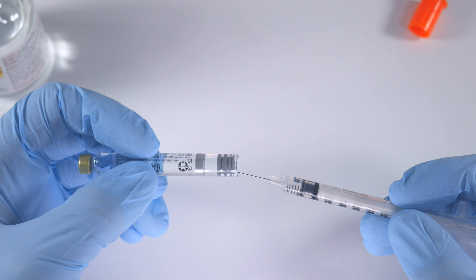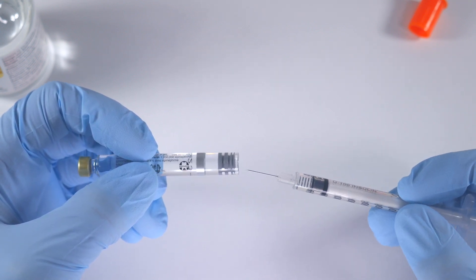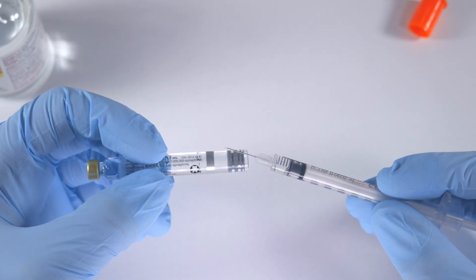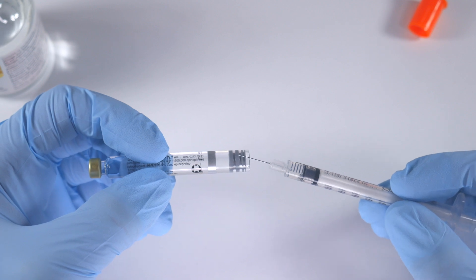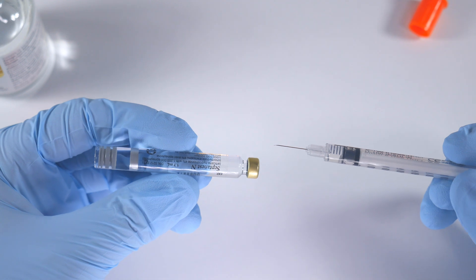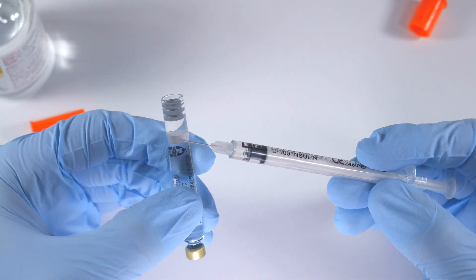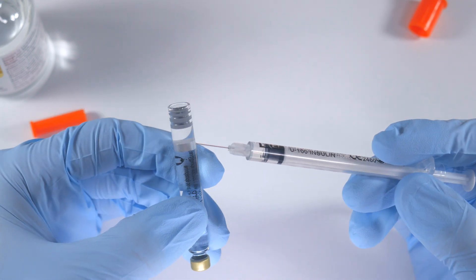Now when you're doing this, the reason you can do it is that the stopper in your carpule actually has a little bit of room where it can still move. So this carpule isn't totally loaded with anesthetic—it's got a little bit of space, a little forgiveness yet to allow you to put this amount of solution in. So you're going to observe as we're putting this in that the stopper is going to move out.